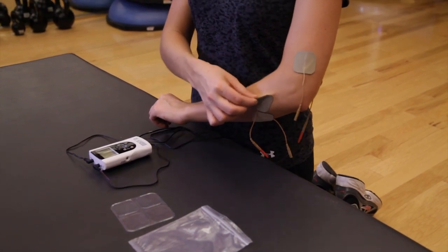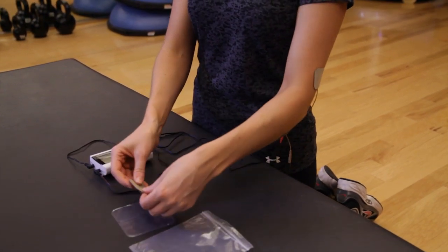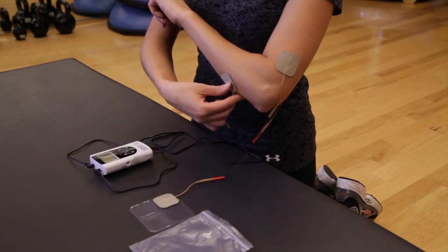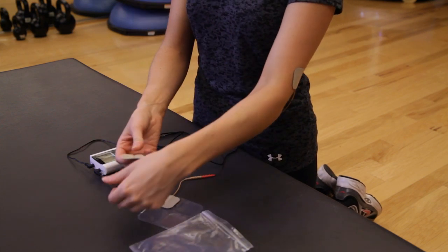When the treatment is complete, remove all four electrodes and place them back onto the plastic sheet. The electrodes may be reused for multiple treatment sessions.